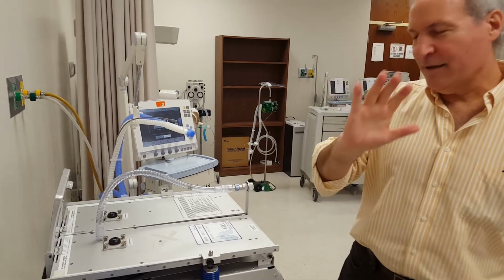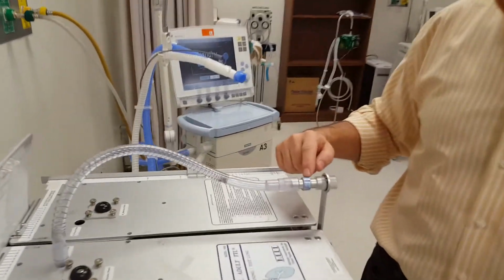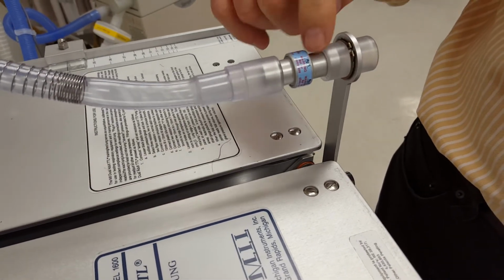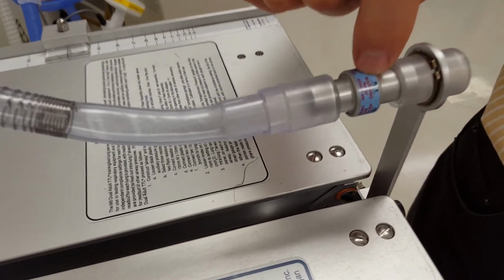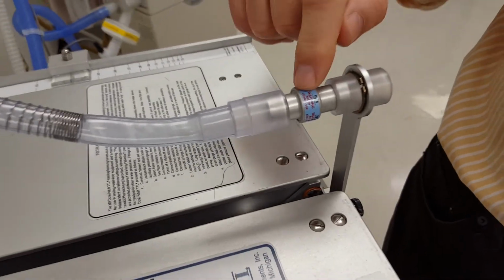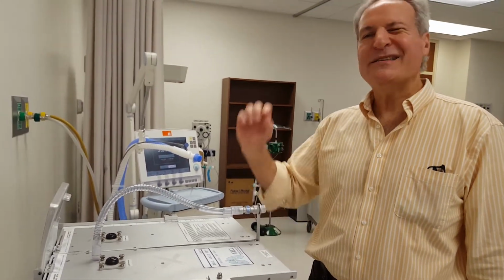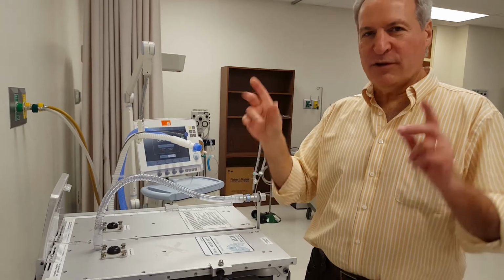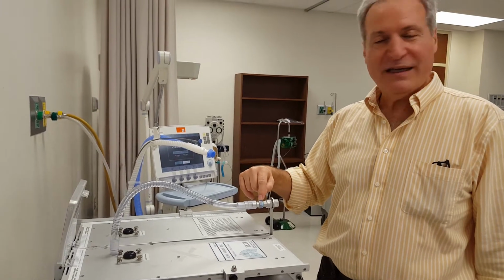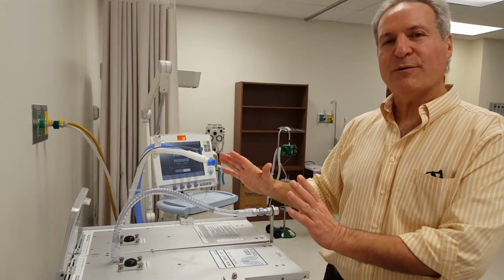So let's look at first our airways resistance. Remember, airways resistance looks at how big or small our airways are. Here you can see it is set up as 5. It says resistance is 5. That means that we are simulating an endotracheal tube, because as soon as we intubate any patient, even though their normal resistance is 0.5 to 1.5, as soon as we intubate them, they're all going to be at least 5 of airways resistance. So this is just normal. We intubate them, that's what we expect.